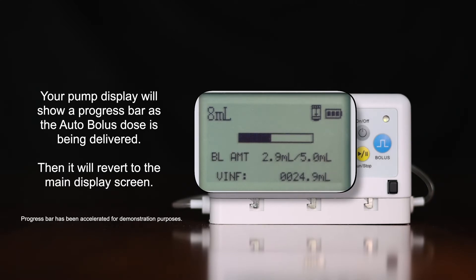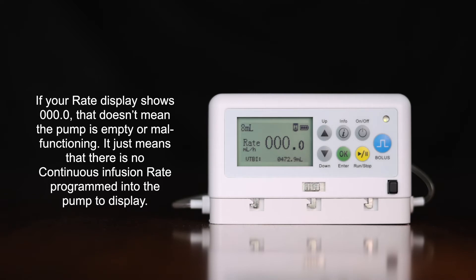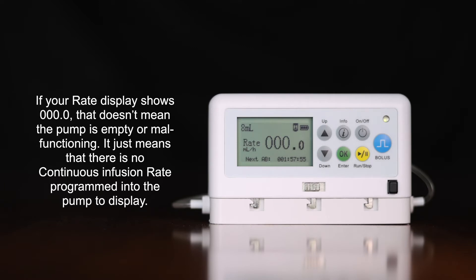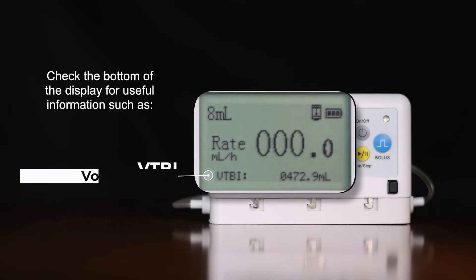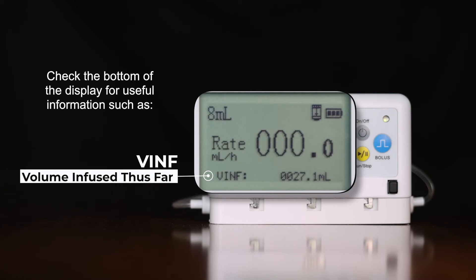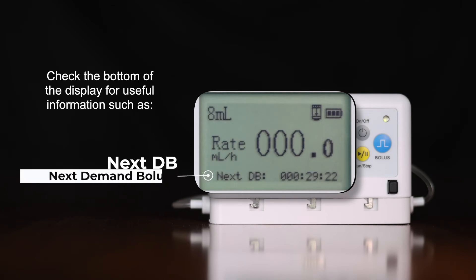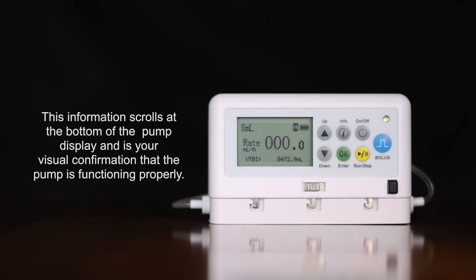When the next AB timer reaches all zeros, the pump will automatically deliver the next auto bolus amount. Your pump display screen will show a progress bar as this auto bolus dose is being delivered, then it will revert to the main display screen. If your rate display shows 000.0, that doesn't mean the pump is empty or malfunctioning — it just means there is no continuous infusion rate programmed. Check the bottom of the display for useful information such as volume to be infused (VTBI), volume infused to you thus far (VINF), and when your next auto bolus will occur (Next AB).